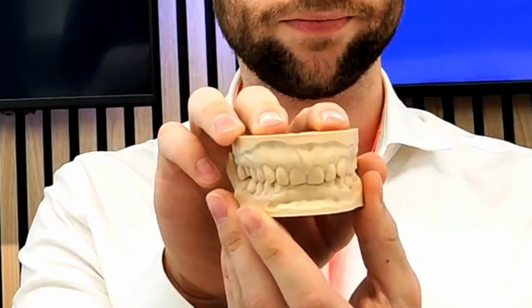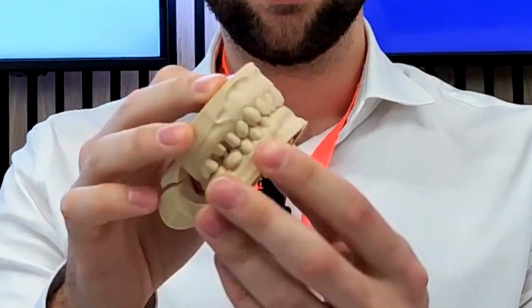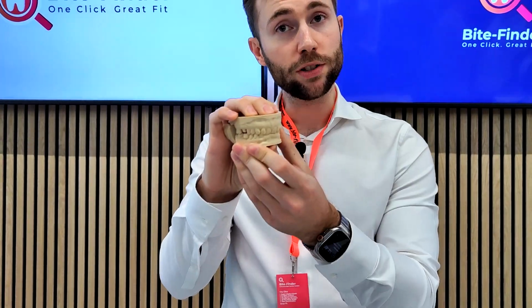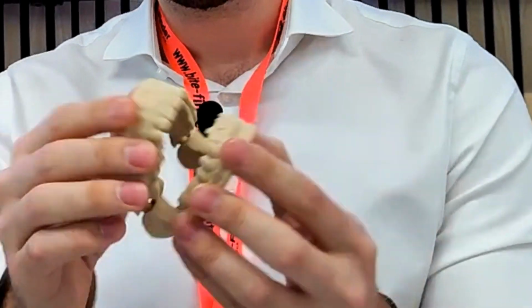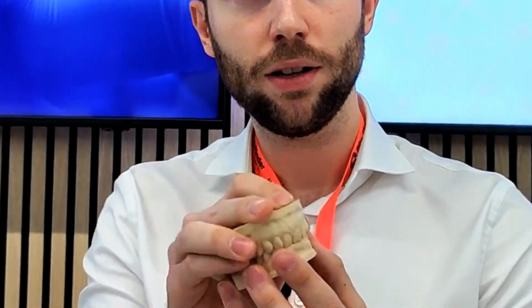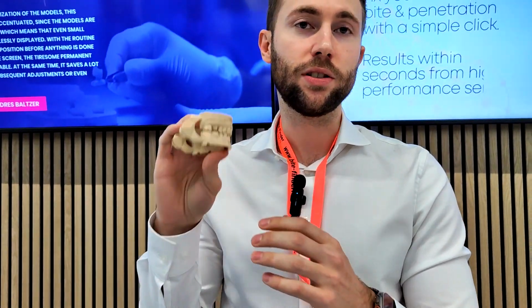What you do with Bitefinder, you just put two models in, no matter the position, you press one button and you get a perfect occlusion. Based on the perfect occlusion, we also generate a dynamic occlusion. Based on the fissures and abrasions, we calculate every possible jaw movement. You can import that into exocad as an XML file and get all the dynamic jaw motion data. Oh, that's nice. And it will make your restorations way better.